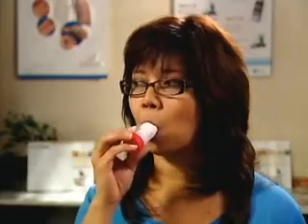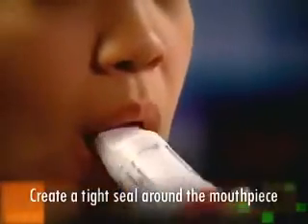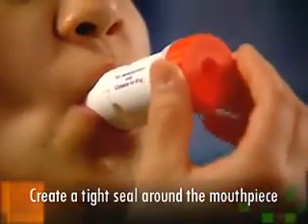Another factor affecting the efficacy of the turbuhaler is the seal on the mouthpiece, which should be as tight as possible to maximize the force of the inhalation.